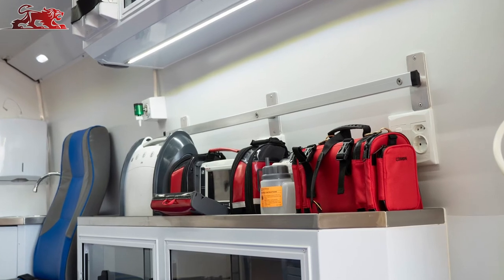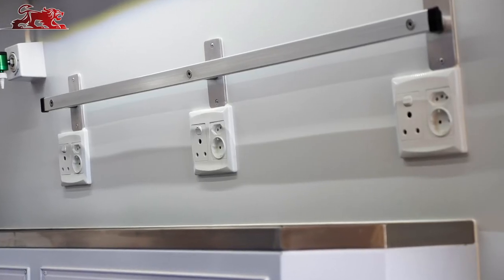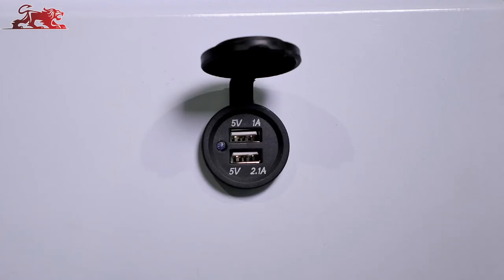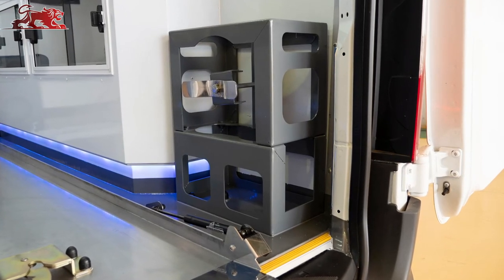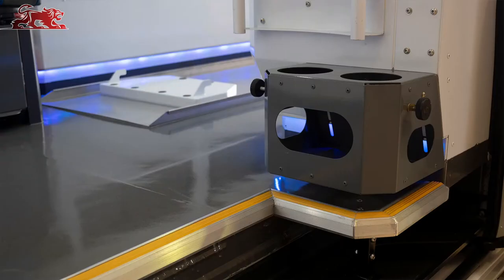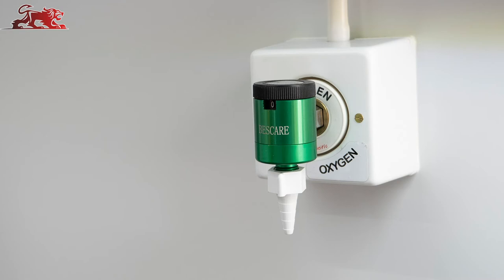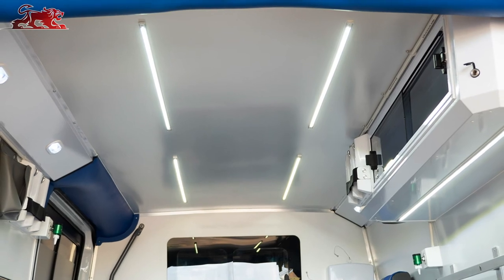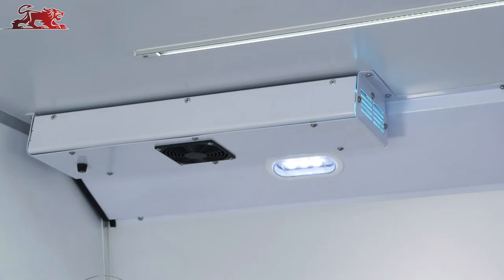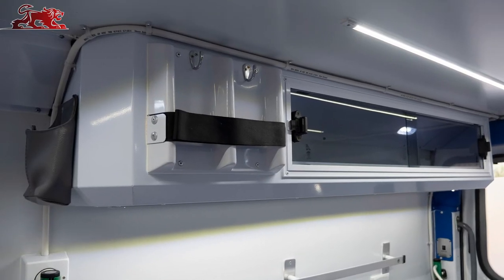There is provision for life support equipment including a Gabler rail and position-specific equipment straps. 230-volt AC combination power outlets and 12-volt USB outlets. Oxygen support system including robust bottle holders for both fixed mounted and portable oxygen cylinders, complete with regulator and oxygen outlets with flow meters fitted on each side of the patient compartment. A mobile incubator support system. Individually controlled LED roof lighting.